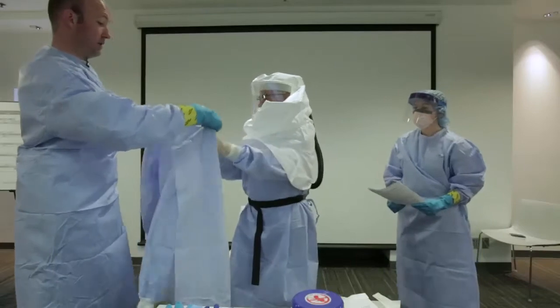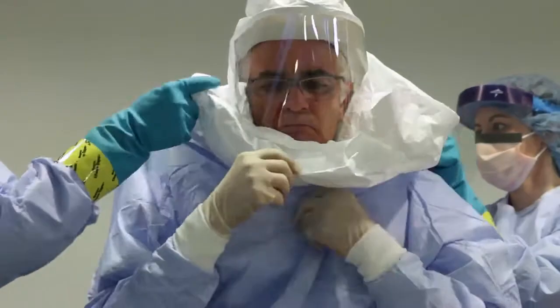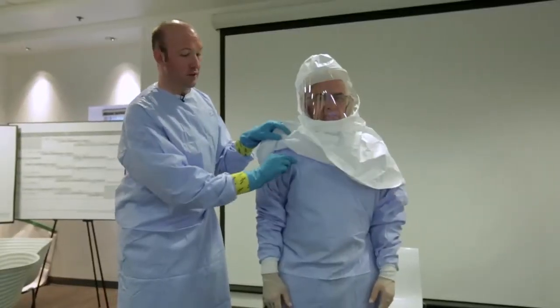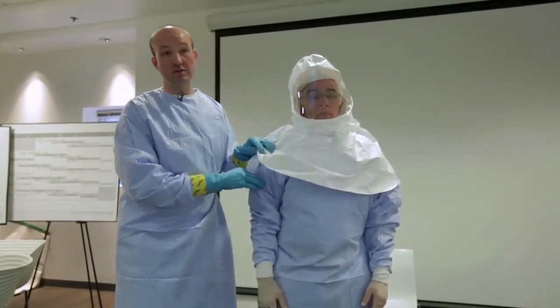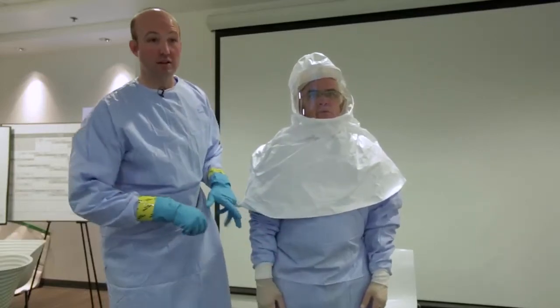This is going to be the outer layer. When we say we have three layers of protection: the outer layer is this, then we have a gown layer, then we have the inner layer — that's the third level of protection — but under that he actually has yet another gown. So on his torso it's four layers, and below his torso it's three layers of liquid impervious protection.